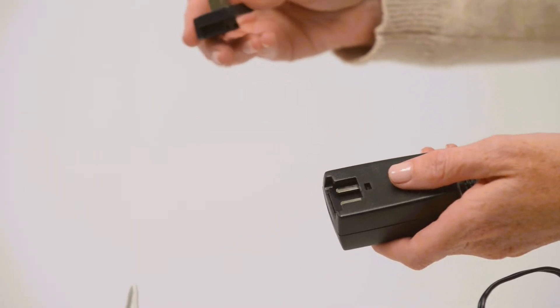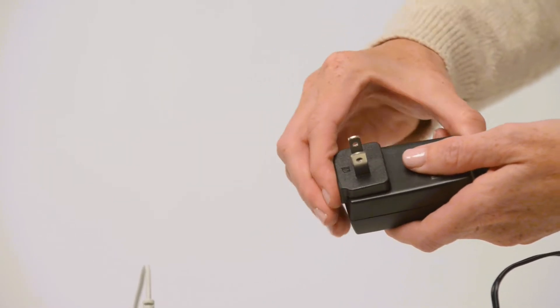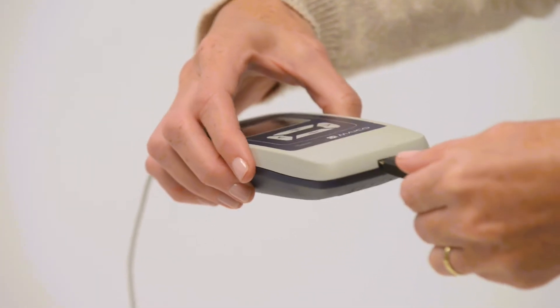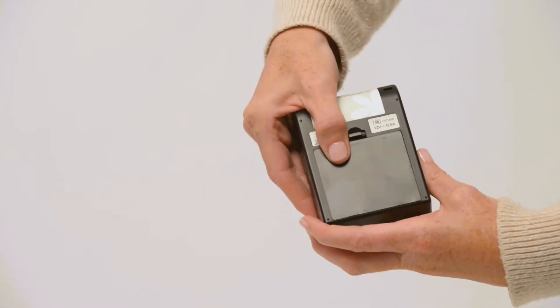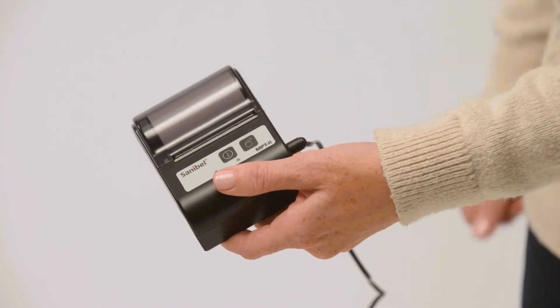Attach the plug onto the AC adapter, making sure it is pushed all the way down until you hear a click. Connect the power cord, install the battery into the optional wireless printer, and connect the printer to power. Charge the device and printer battery overnight.